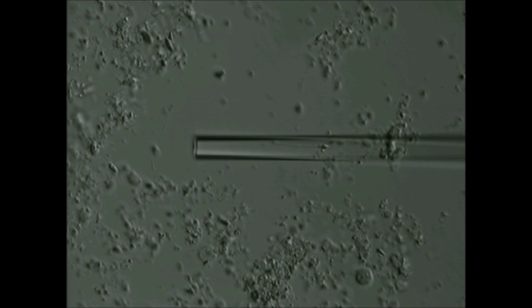Sperm that have been retrieved from the testes are usually immature and immotile, and hence it is difficult to select out the live sperm from the dead sperm for ICSI, or injection of a single viable sperm into a single mature oocyte.